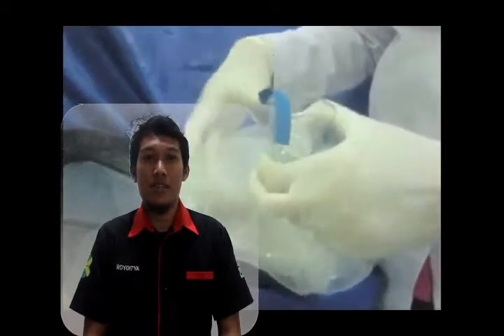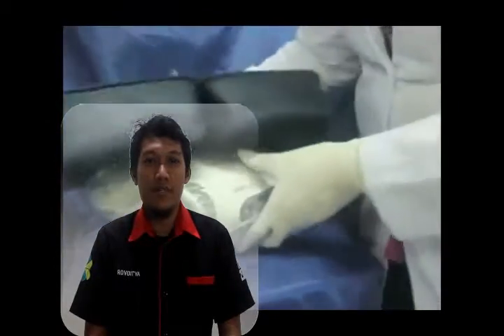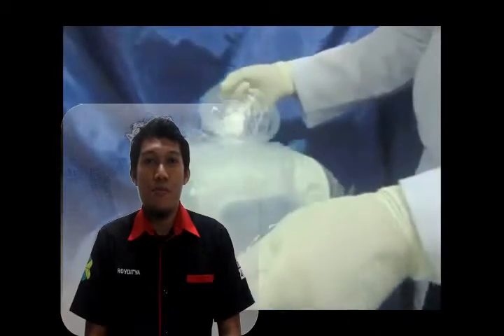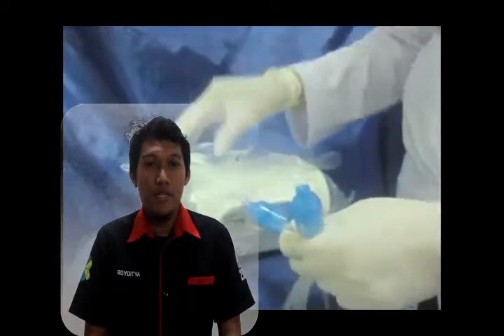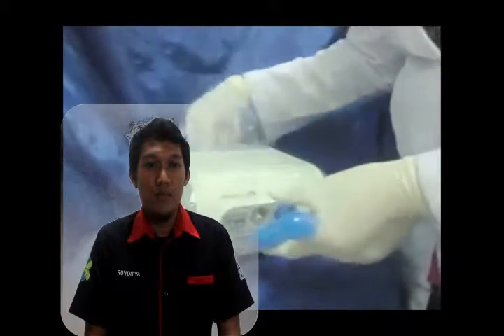One, after every use, thoroughly rinse the nebulizer cup, shake out any excess water and let it air dry. Once a day, the nebulizer cup and tubing should be washed with mild soap and warm water and also dried by air. Two, make sure to change the filter in the compressor of the machine every 3 to 6 months to ensure a fine mist is achieved with every use and the motor runs properly.